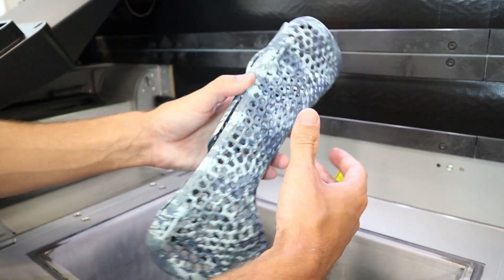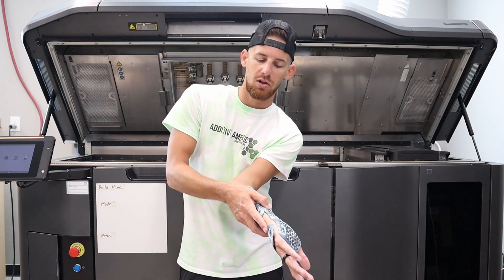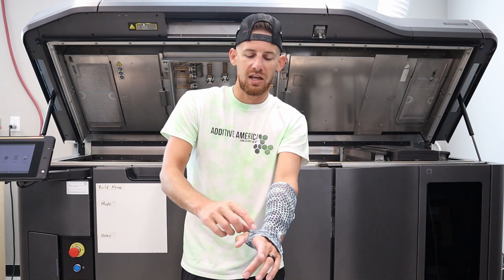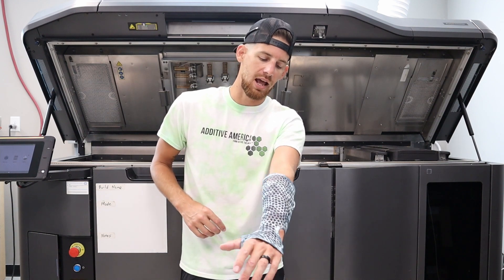What's cool is the underneath — and this isn't even my arm — but you can tell how it was all lined in there to be right along with the person's geometry. The ability to add the rigid hard line around the outside where we needed it and then make things light and thin everywhere else.